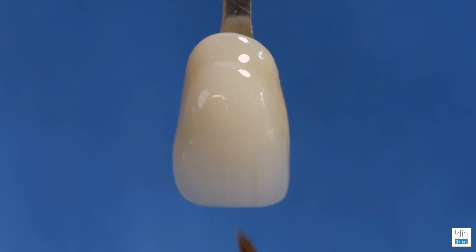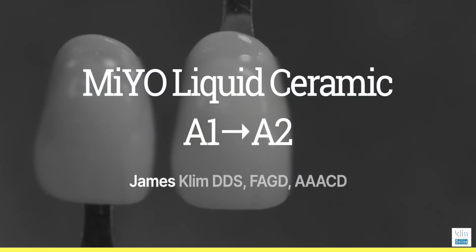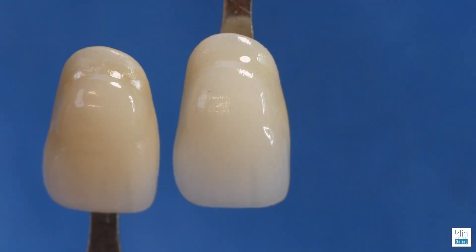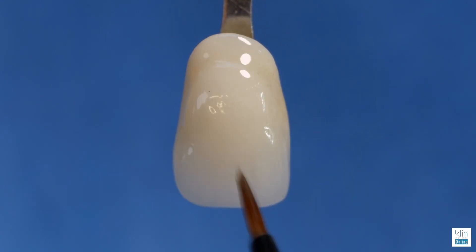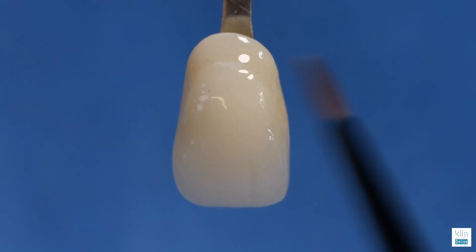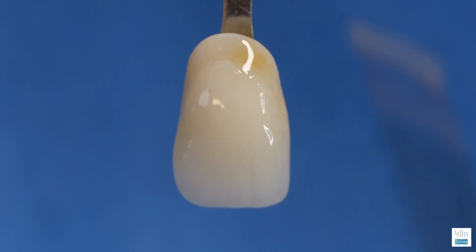The technique we use here is what I teach in class — take an A1 and make it into an A2 without blotching, and you can achieve this with one firing in most cases. We add the glaze first — that's really important — and then float on top of that glaze using a lateral float and a dabbing float. We're adding a dentinal shade to the cervical area. Make sure there's a nice even layer with no brush strokes.